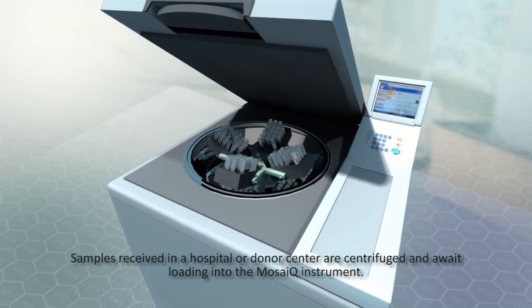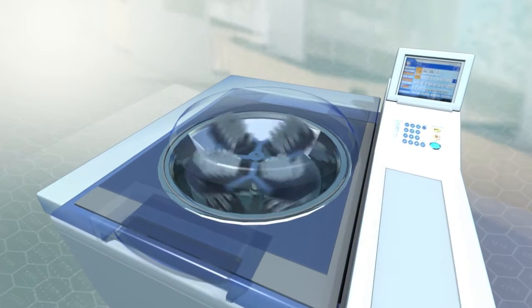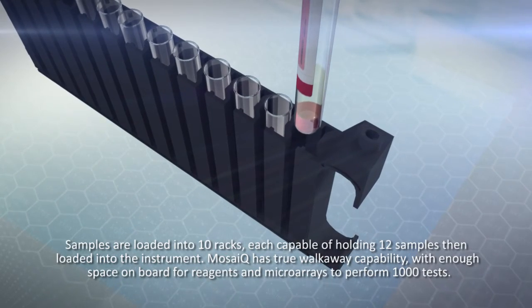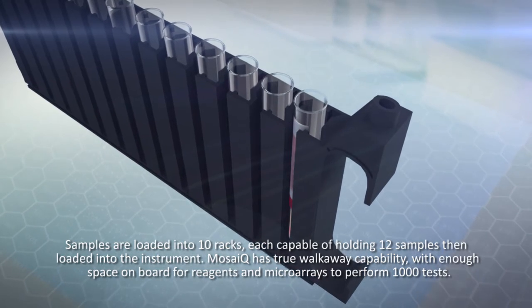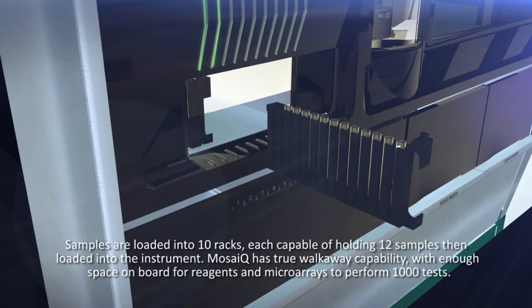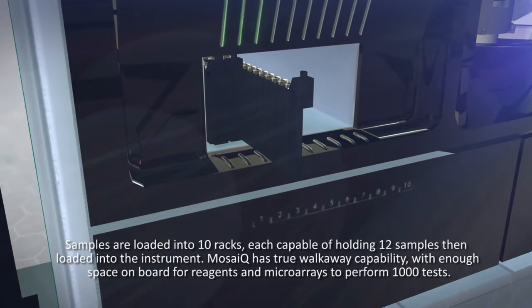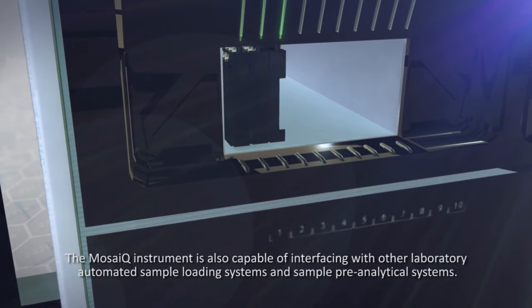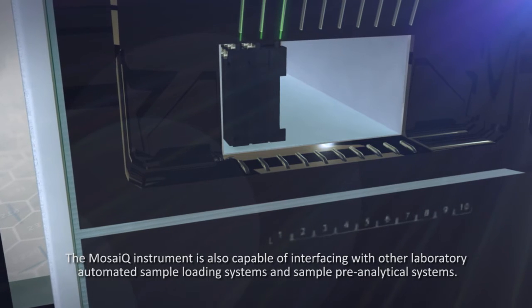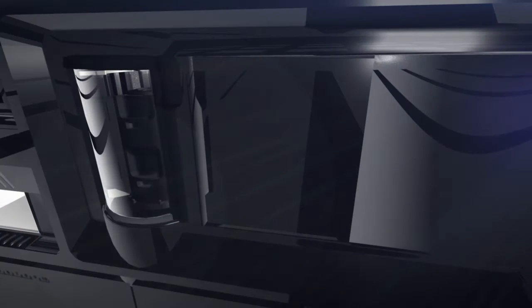Samples received in a hospital or donor center are centrifuged and await loading into the MosaiQ instrument. Samples are loaded into 10 racks, each capable of holding 12 samples, then loaded into the instrument. MosaiQ has true walk-away capability, with enough space on board for reagents and microarrays to perform 1,000 tests. The MosaiQ instrument is also capable of interfacing with other laboratory automated sample loading systems and sample pre-analytical systems.